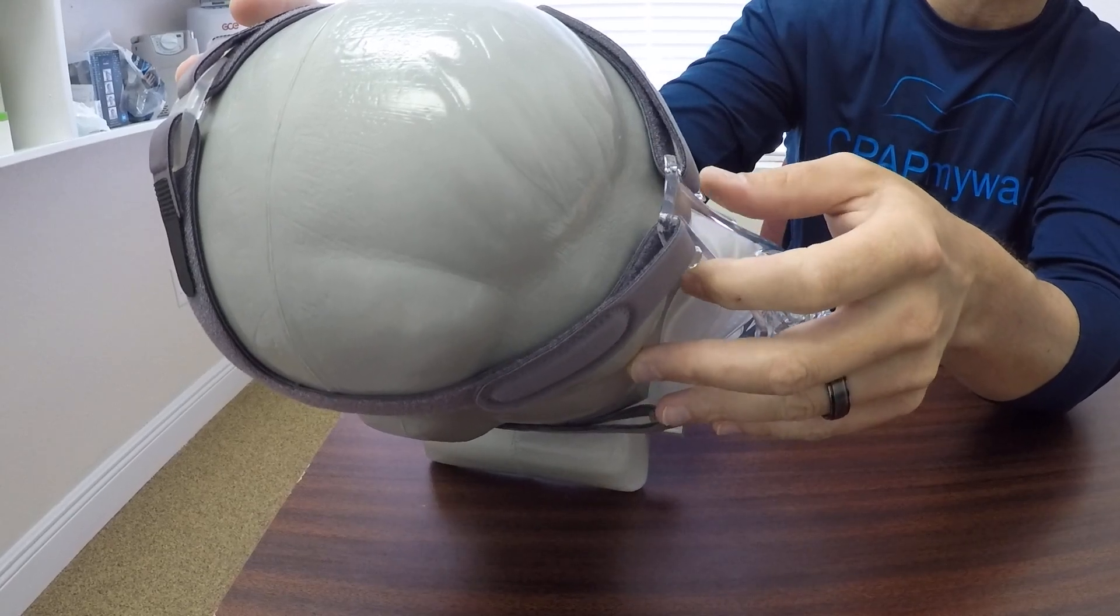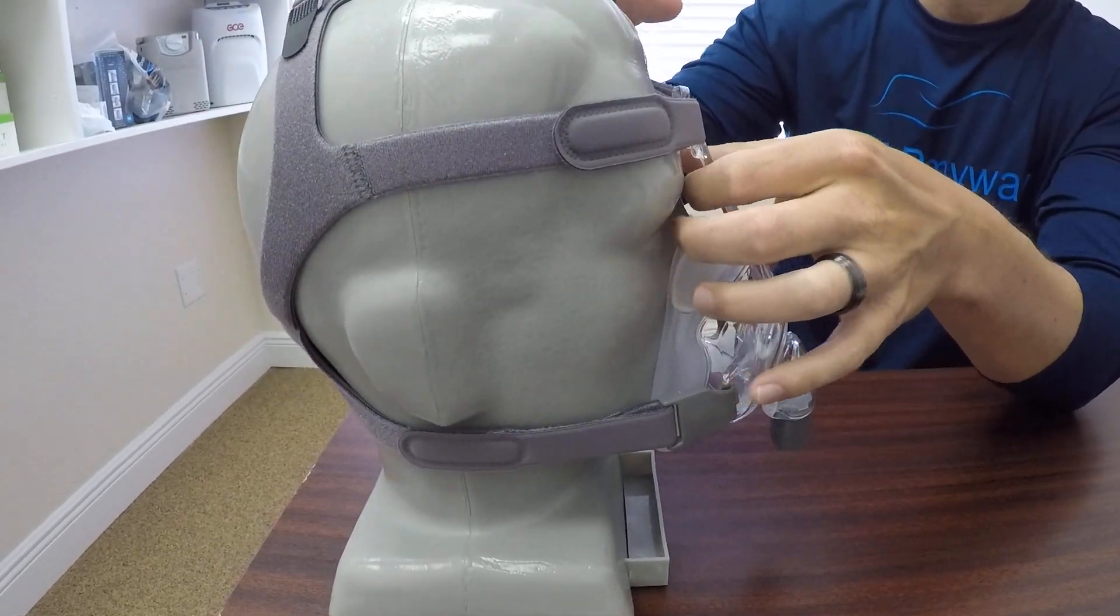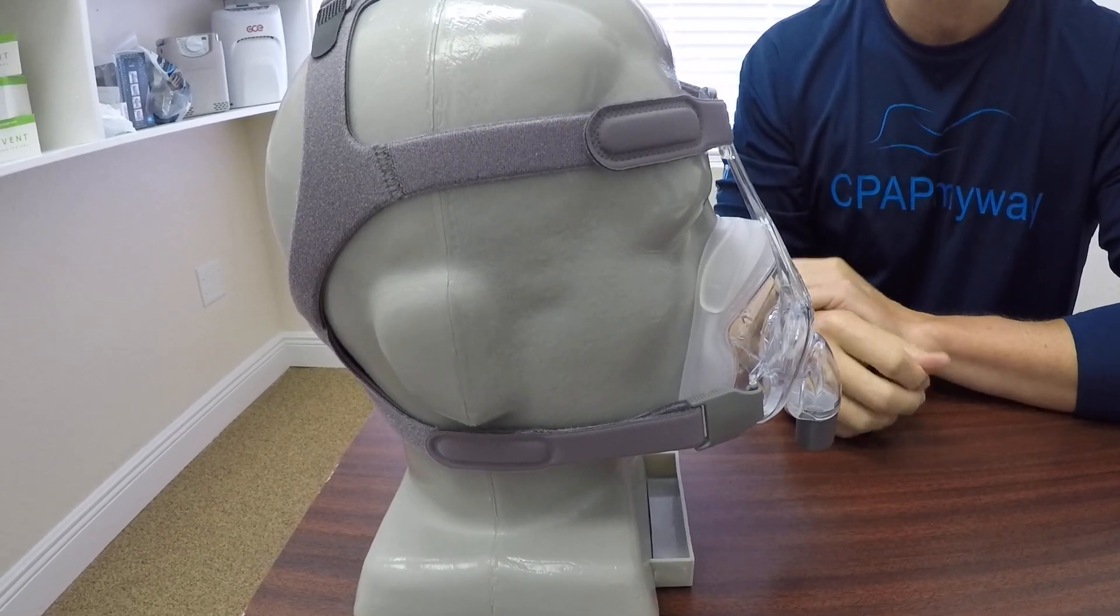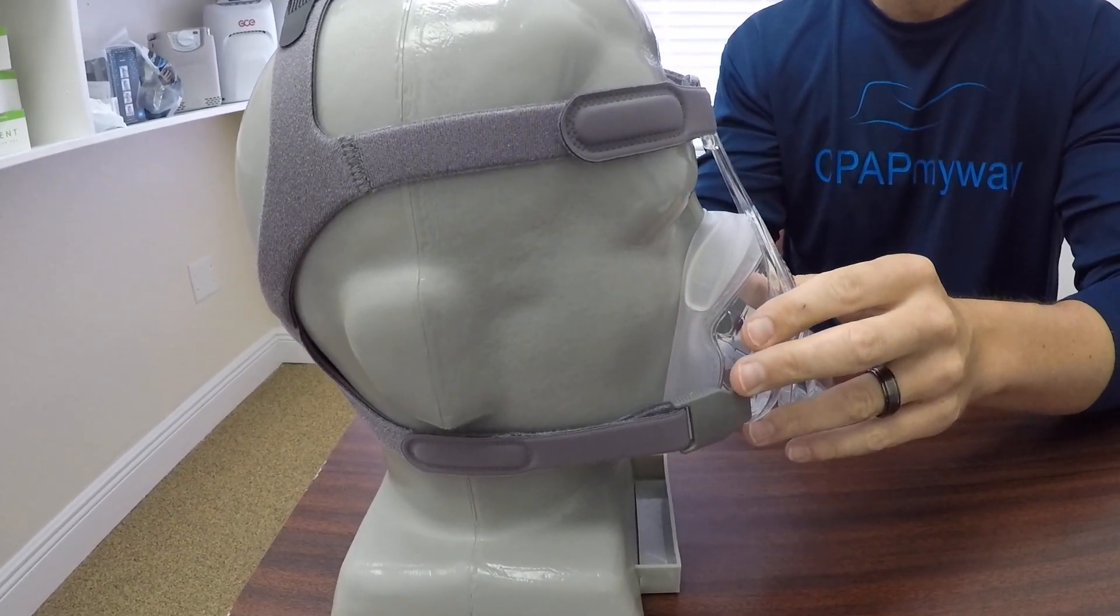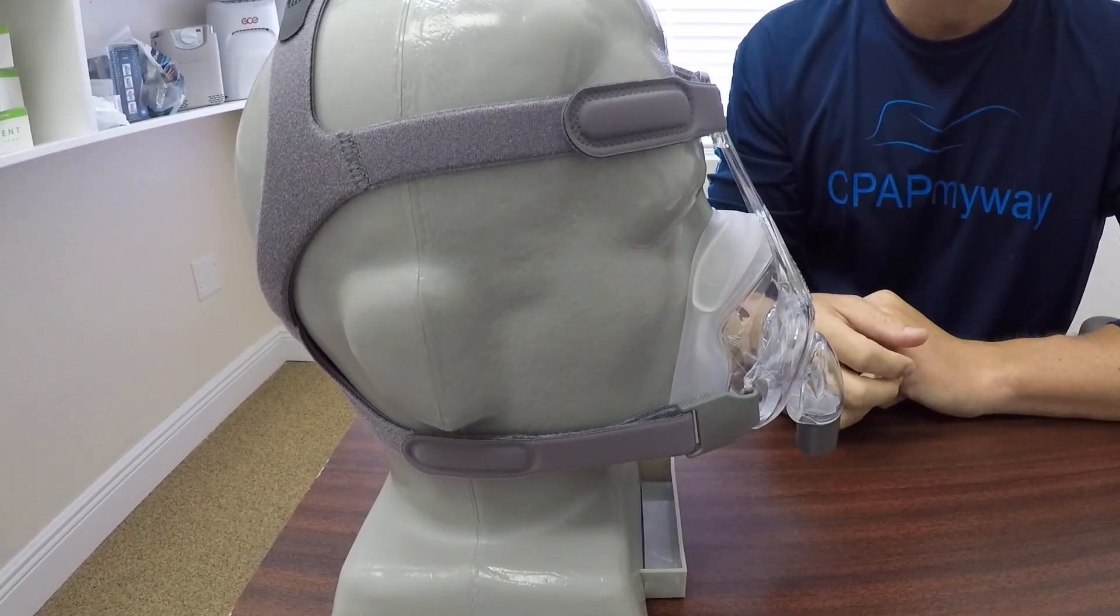So for some people, depending on the ergonomics of the head, it's going to touch a little bit there, but for a lot of people, it doesn't touch at all. The main concern is that the mask seals appropriately across the bridge of the nose.